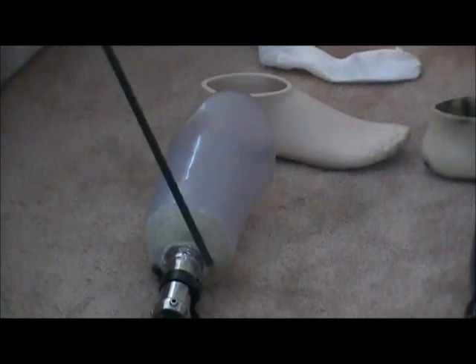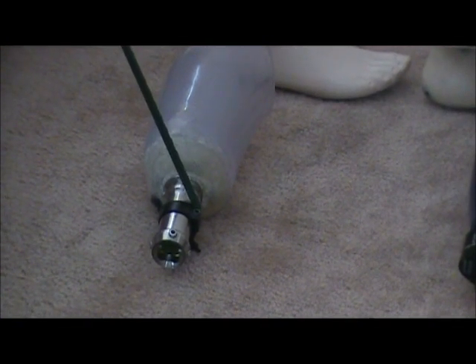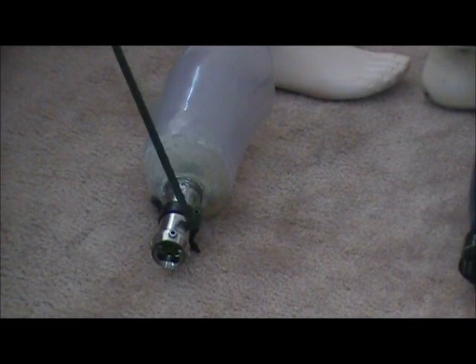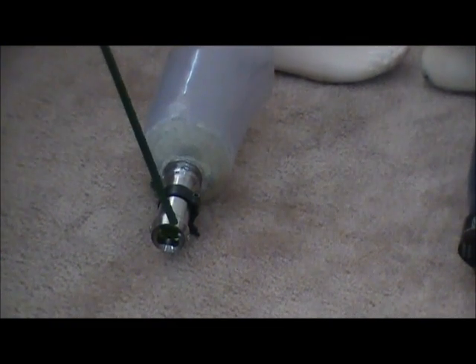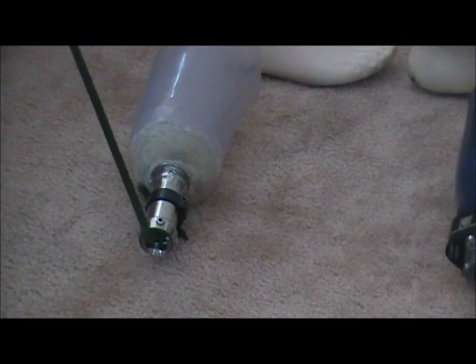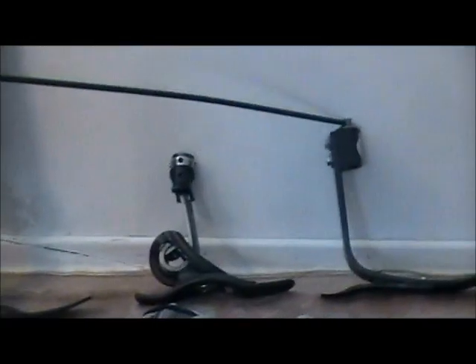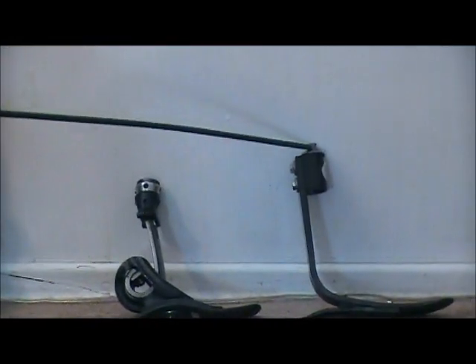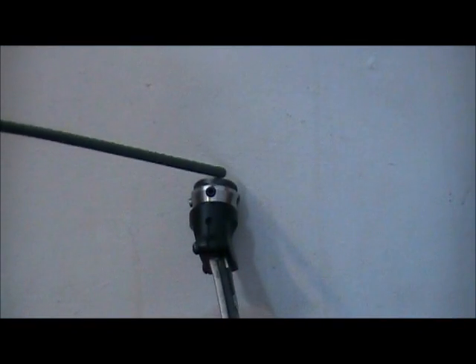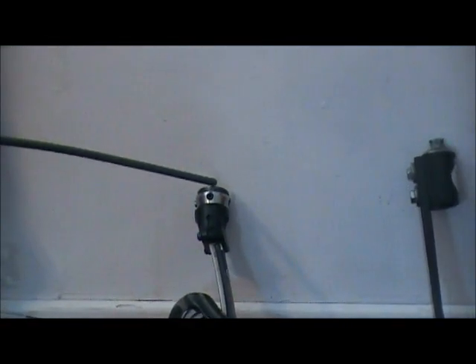This is a coupling attached to the bottom. This allows alignment of the shin — or what would be the shin — and in and out for toeing in and out of the foot. It attaches to a male pylon, which you'd find on this foot over here — it has a male adapter at the top that fits exactly into that socket. This foot here has a female adapter at the top, so it would fit into a different kind of coupling on the top of the socket.